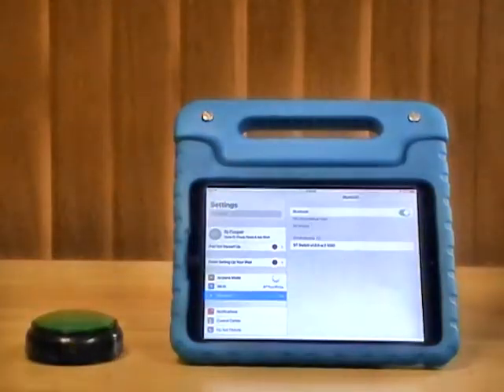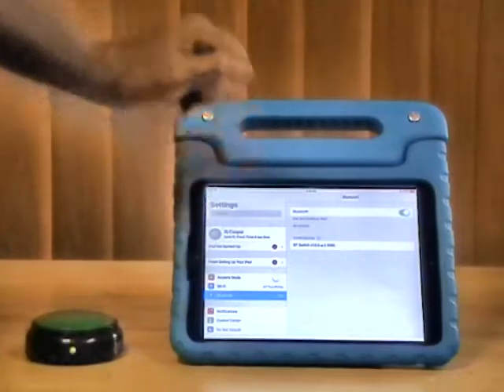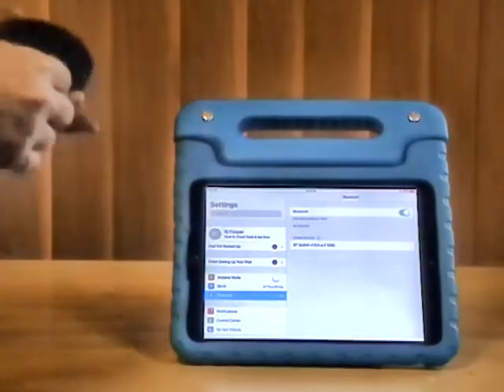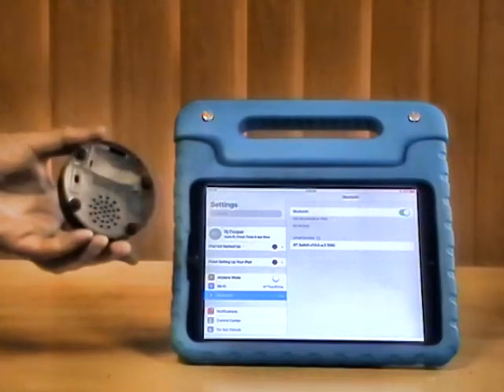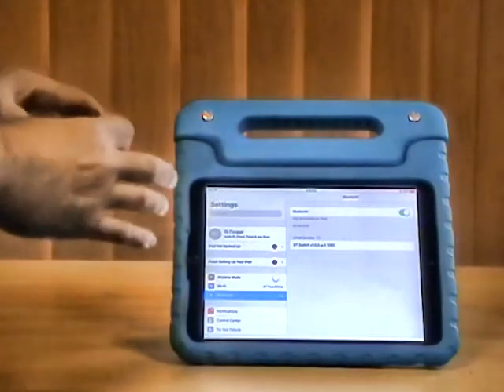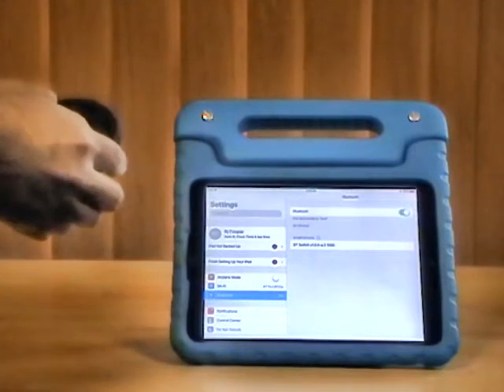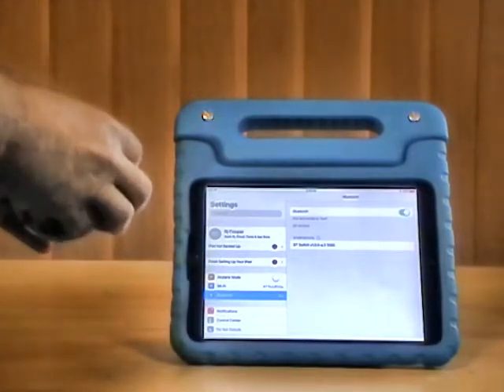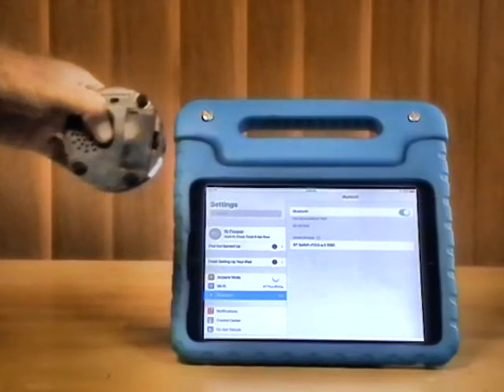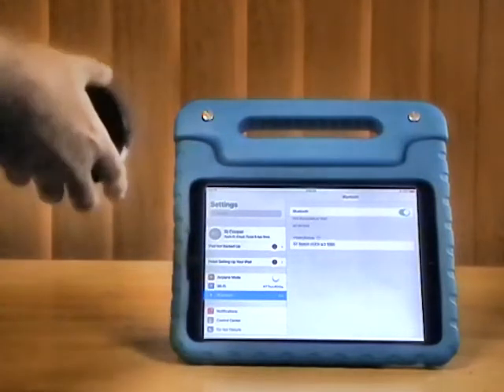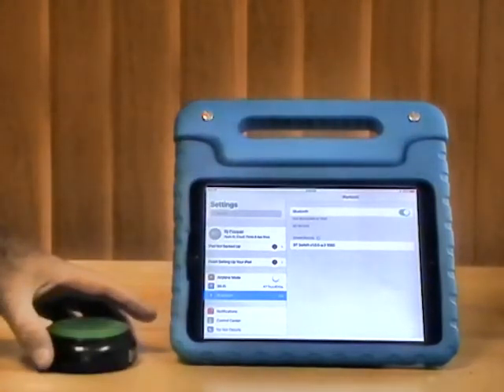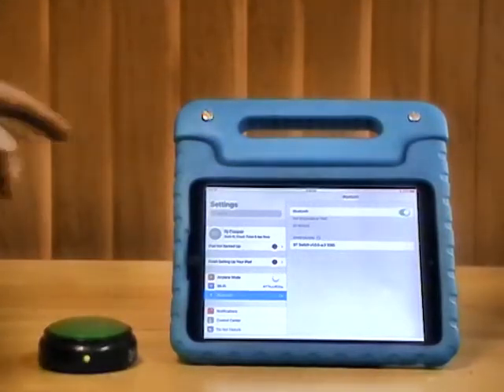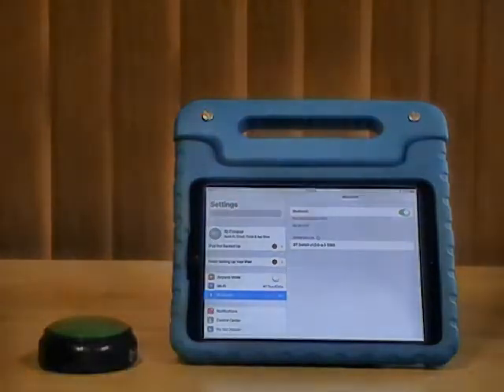If RJ didn't appear here, then I simply turn off my BT small switch, press and hold the button while turning it back on for about four seconds, let go and it will go back to pairing or discovery mode at which point it should show up in the BT settings list.